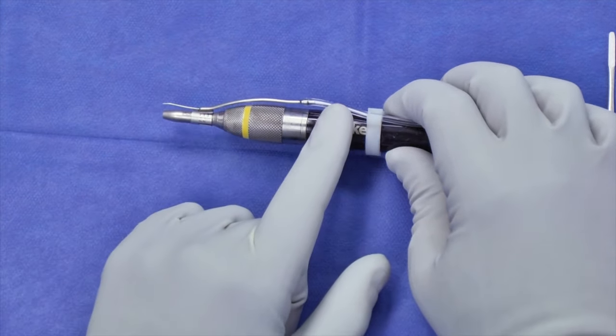Putting a diamond on is done the same way. You can ratchet it to different lengths — you can feel it clicking in and out as you go. So if I wanted a little bit longer length, I'll go up to 5, lock it in place, and then it's ready to go.